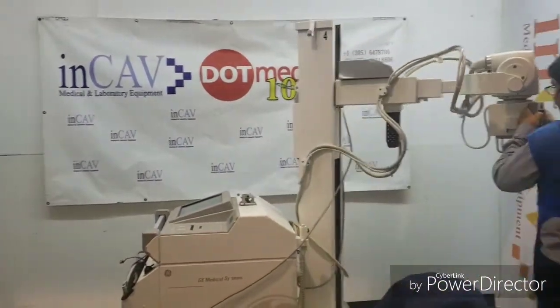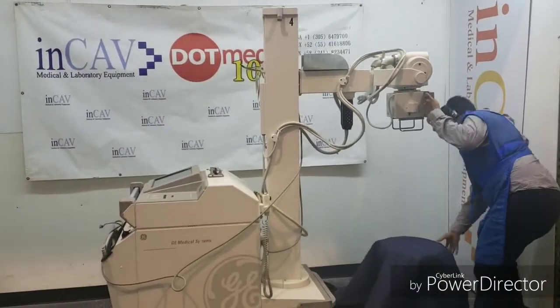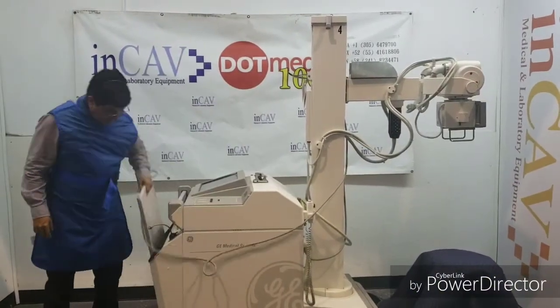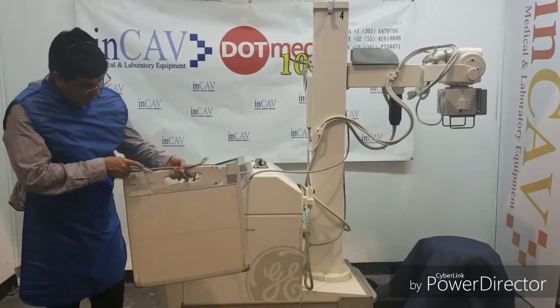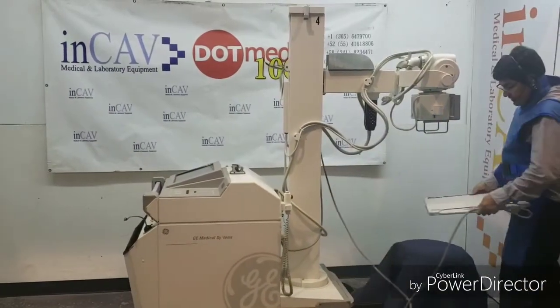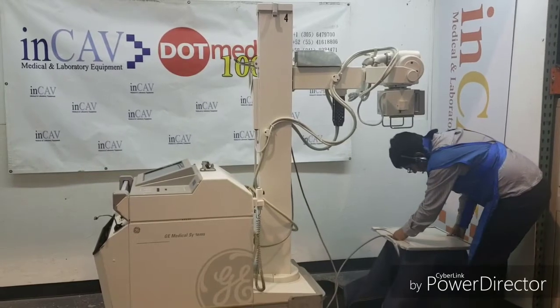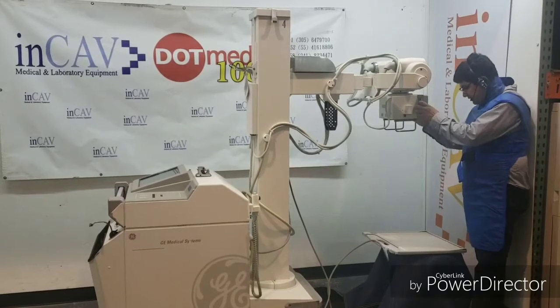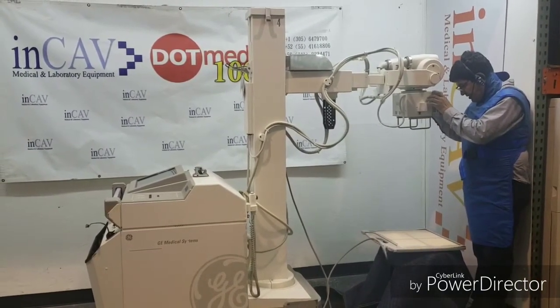Let's take the cable this way so you never pull the cable. It's important not to pull the cable. Now let's set up the detector. Set up the lights and set up the collimator.